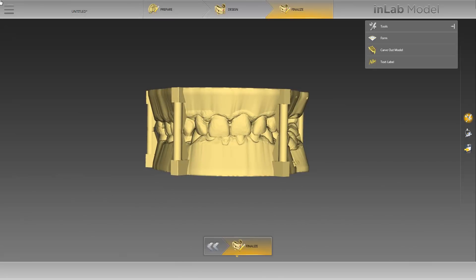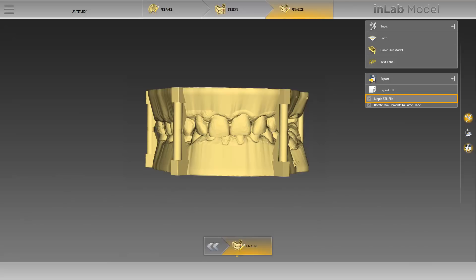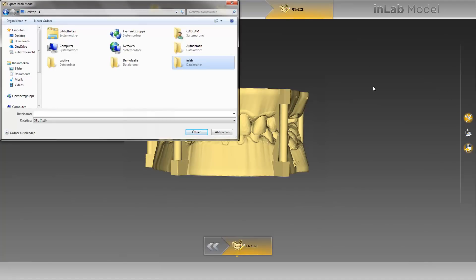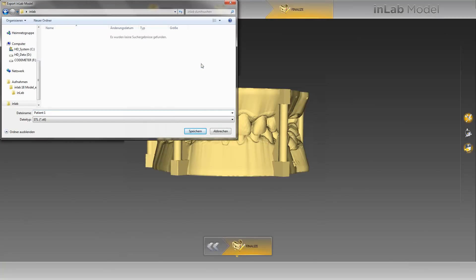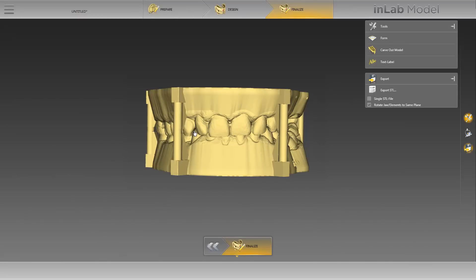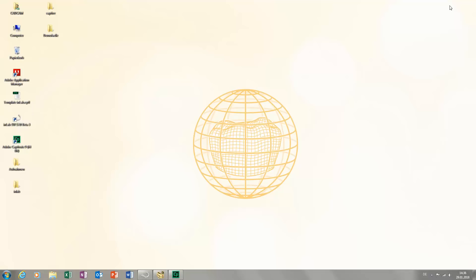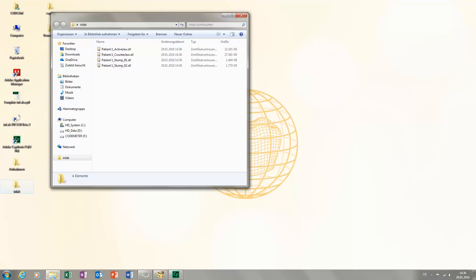Finally, we can export our model data. For this, we open the export option in the page palette and deactivate the option Single STL file, as we wish to create a separate STL file for each element. The export is initiated by clicking on Export STL. A window opens where you will automatically see your disk drives. In our case, we have already created a folder called InLab on the desktop, and choose this as the destination for our files. We name our case Patient1 and then click on Save. Back in the InLab software, we will minimize our window and check the saved data. The software has exported a total of four STL files: one for the upper and one for the lower jaw, and one file for each stump.